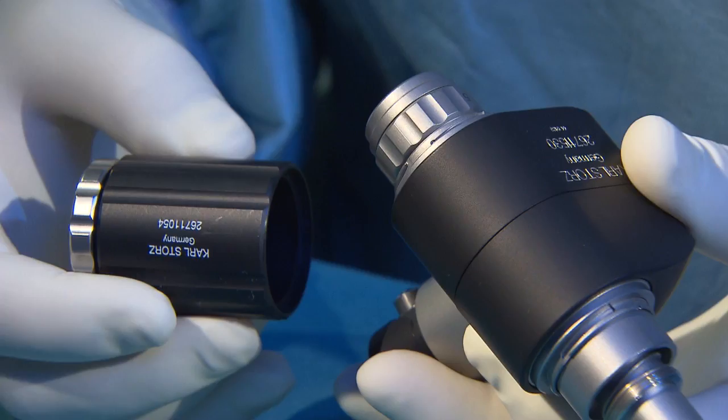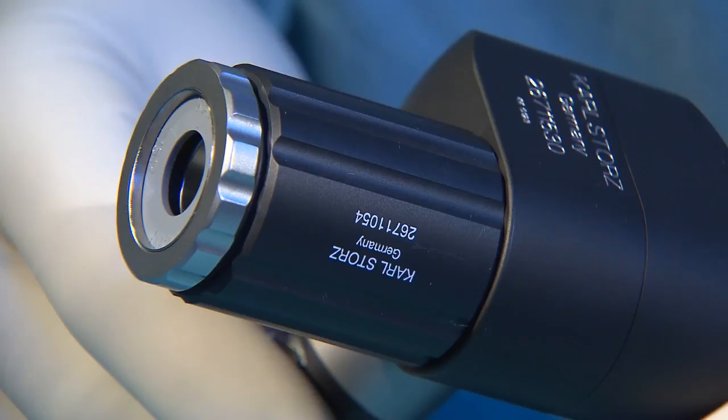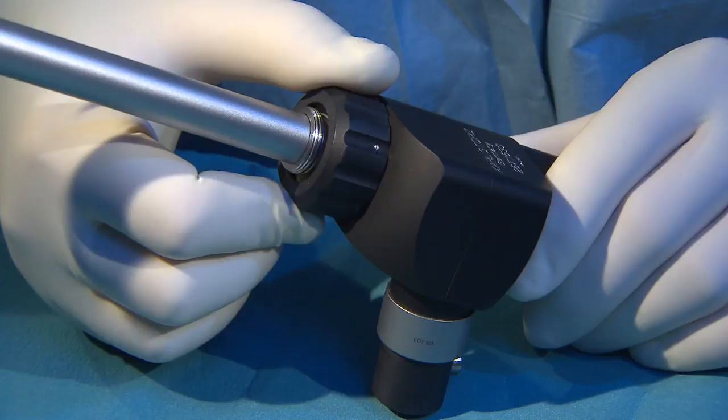This fixates one of the two protective covers of the motor section. A screw cap is used to fix the front protective cover of the motor, and then the knife guard is pushed on.